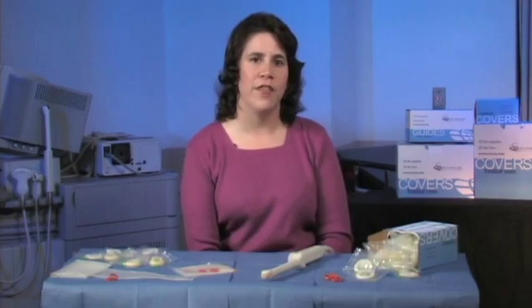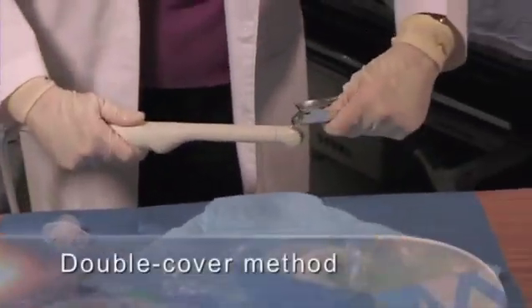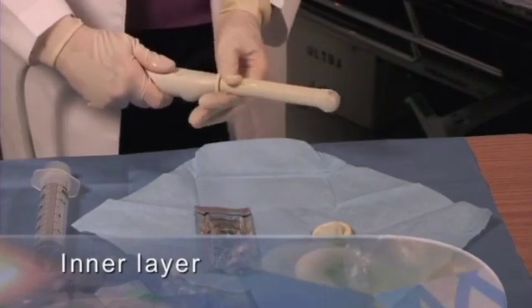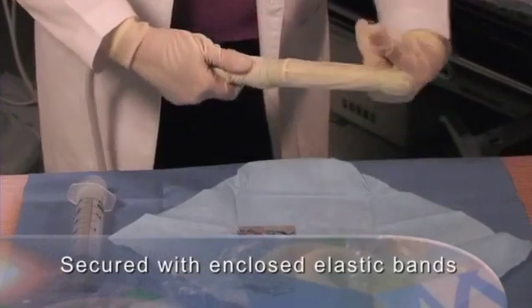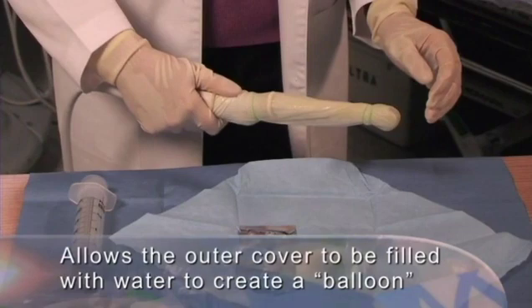When performing a transrectal ultrasound, there are several types of transducer covers available. Transrectal ultrasound is an invasive procedure that may involve tissue biopsy or brachytherapy, seed or marker implantation. Some transducers use a double cover method to create a balloon or water bath through which to scan. This involves placement of one cover that forms the inner layer, which must include the gel covering the transducer face. Both the inner and the outer cover are secured to the transducer with enclosed elastic bands. This allows the outer cover to be filled with water to create a balloon that will displace any air between the cover and the wall of the rectum.